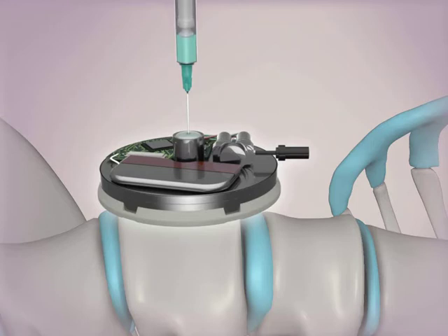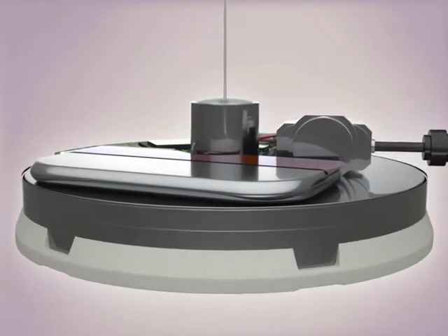The raised septum and positive pressure in the pump reservoir facilitates proper filling and is designed to avoid pocket fills.